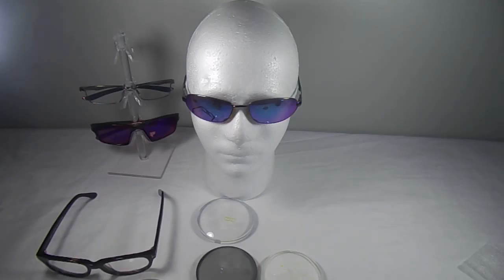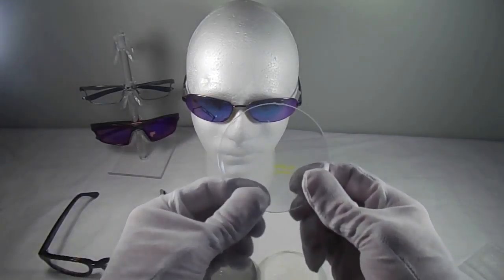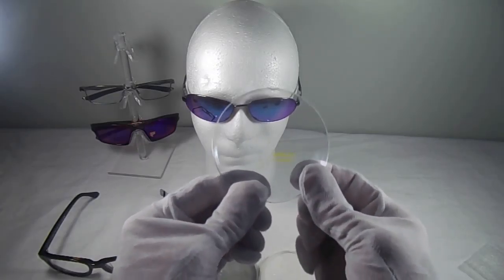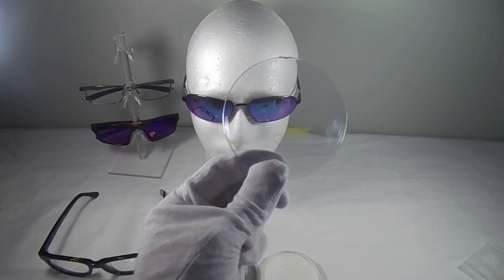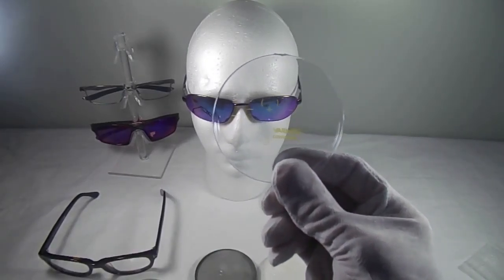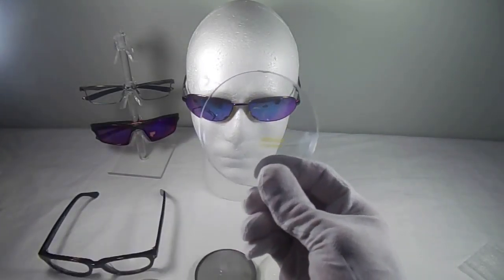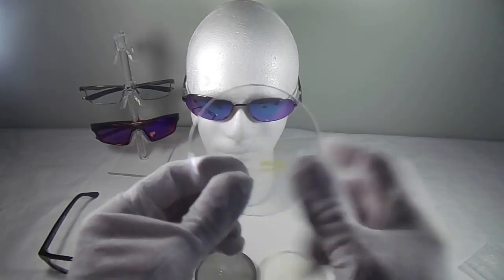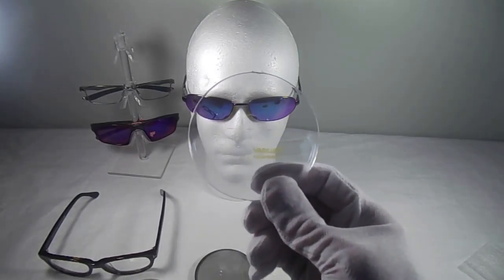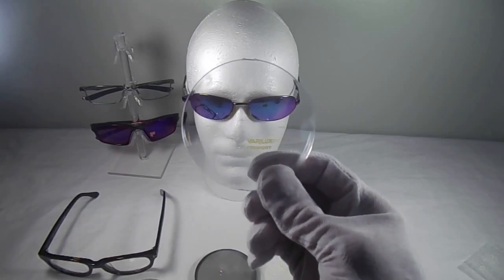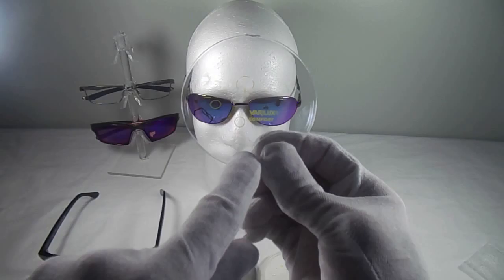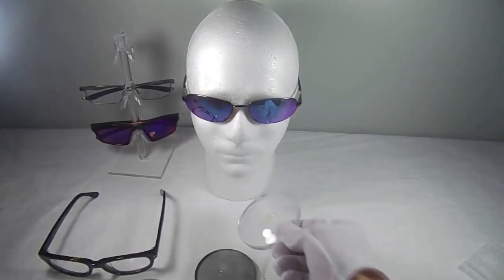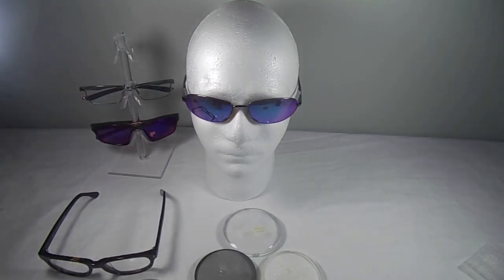Okay, so a hybrid design. I definitely wanted to bring this up because there's a lot of questions about the Physio Enhanced or a Physio 360. There are a couple of others out on the market that we don't really work with. You have to forgive me because this is a comfort design. The Physio basically is the same thing as what I'm holding in my hand. It's a preformed lens with the bifocal in it. So the Enhanced is kind of like a hybrid, whereas you already have your bifocal design already molded into the front. What they do is the distance portion is digitally surfaced. There might be some compensation for the distance area. So that's going to give you a lot of clarity peripherally on the lens.